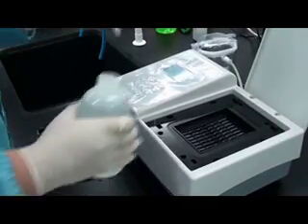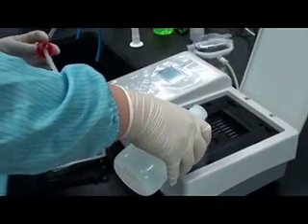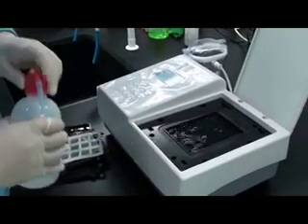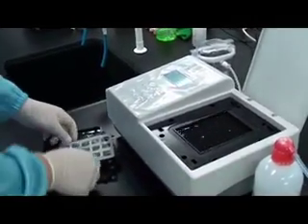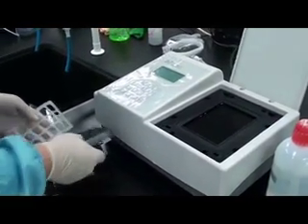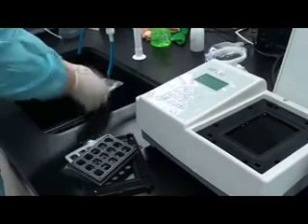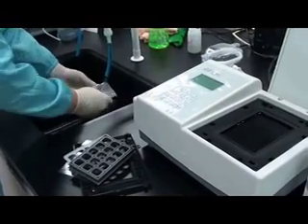The reaction chamber is located on the right hand side of the keypad. Before you start the experiment, first rinse the reaction chamber with distilled water.